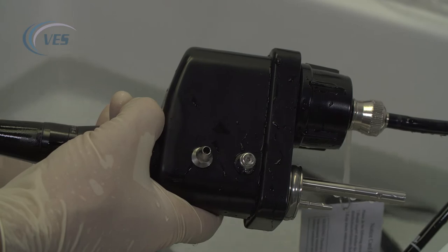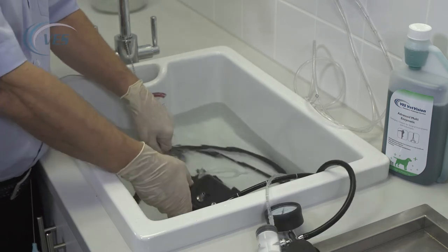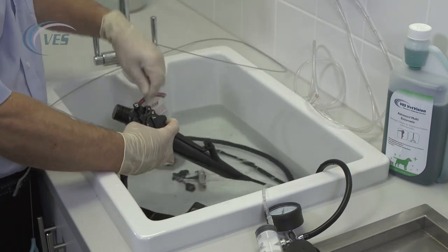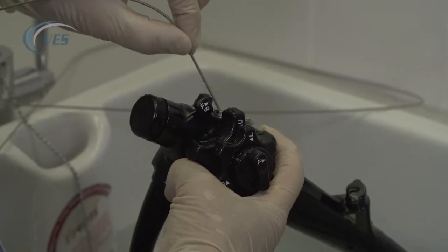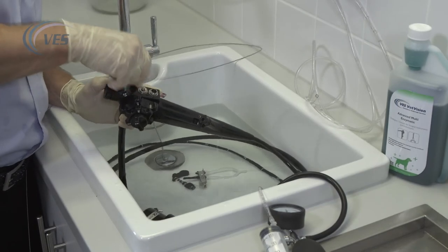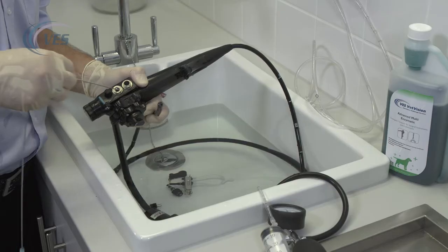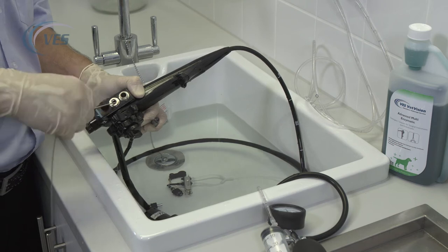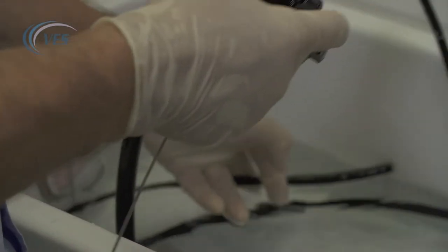If there's any pathology on the brush you just simply wipe the pathology off and then remove the brush. The next port to go through is in the same port but at 45 degrees — you can see the different angle on the brush. Again, nice short movements, and this will actually come out of the distal tip end. Make sure there's no pathology on there. If you get too much resistance please don't force the brush through — stop, bring the brush back out, try again. If again you feel too much resistance, give our service department a ring and they will certainly be able to give you some advice.